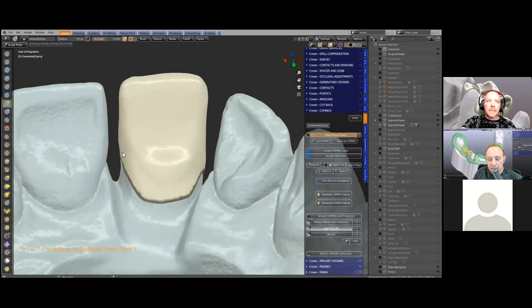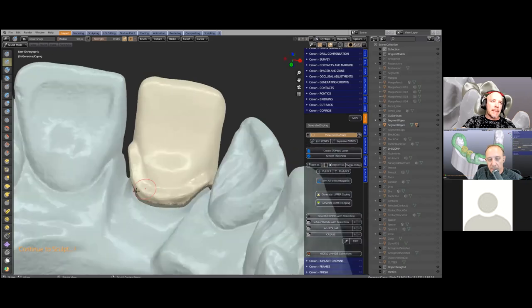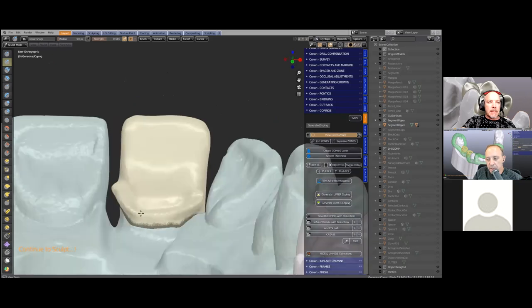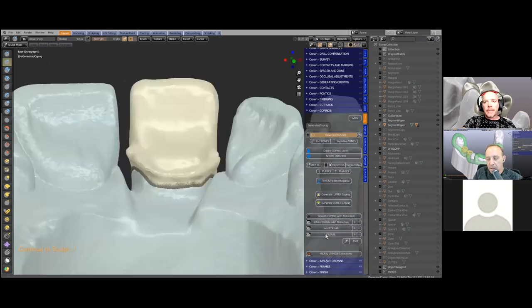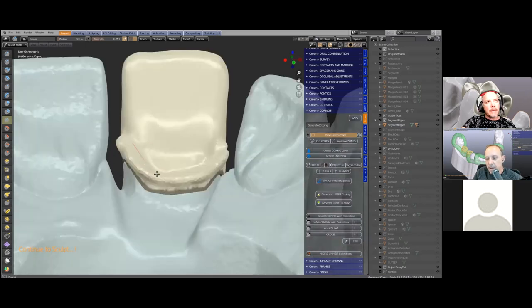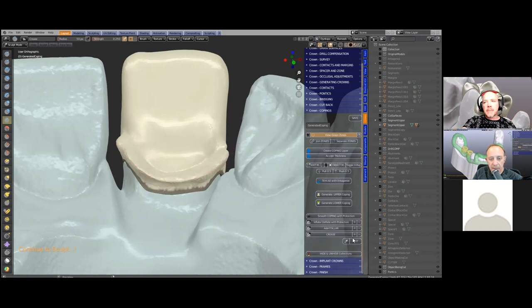Michael's going to put a collar on the back of it. By using the inflate tool you can just pull the mesh outwards in a kind of a step. Then to give it more definition, there is a crease tool in Blender which we've incorporated on the menu — that will allow you to make a definite edge. It's like a little magic wand you just pull over and it will indent like that; then you can use the reverse to make the edge on the outside nice and crisp.